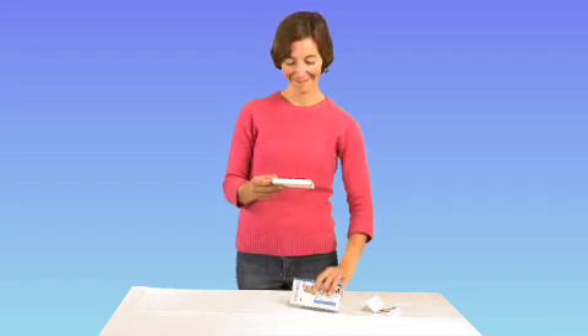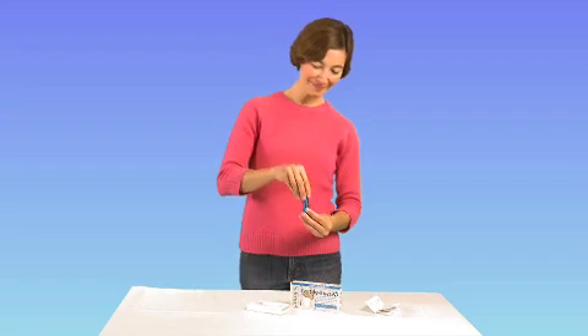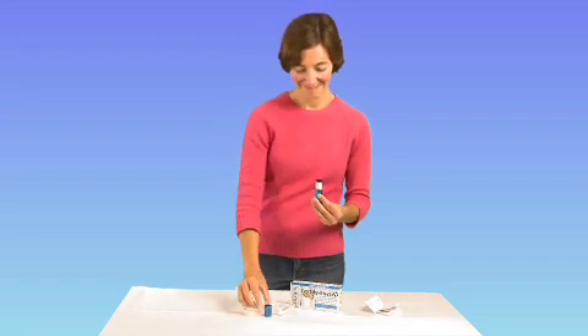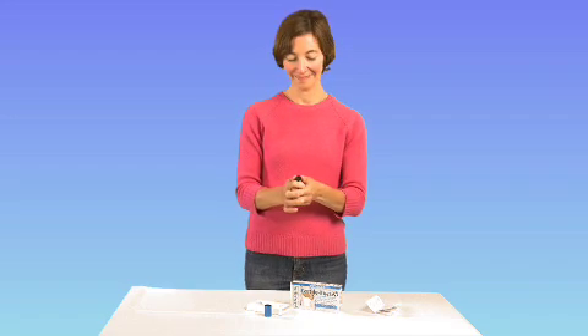Simply remove Fertile Focus from the box, take off the end cap, and remove the black lens assembly from the tube. Use your two thumbs to gently lift it out. Do not unscrew the lens, as that is for focusing purposes only.